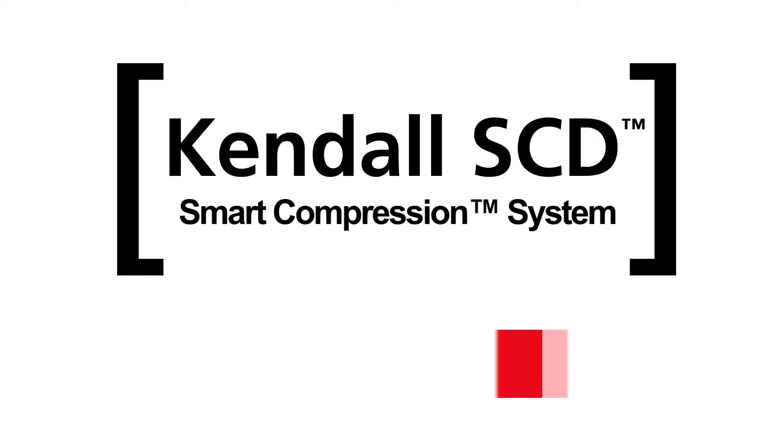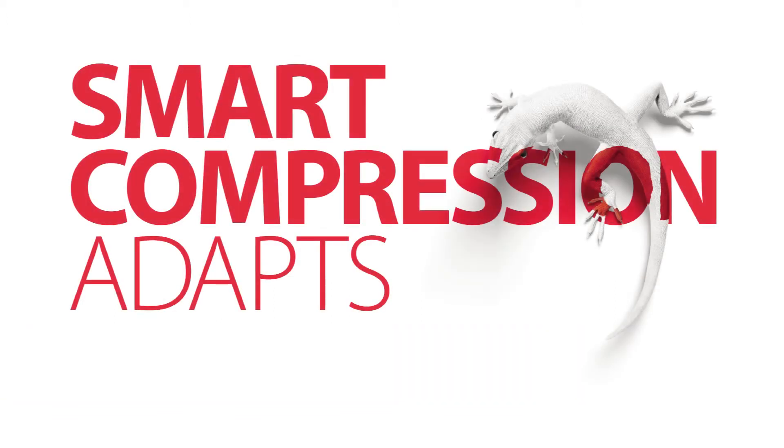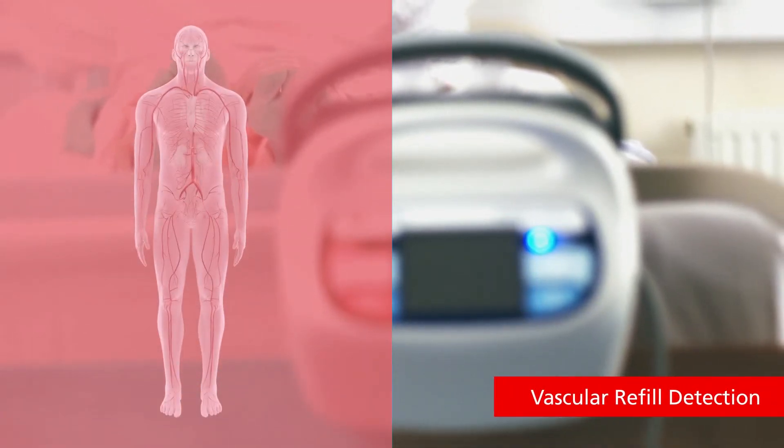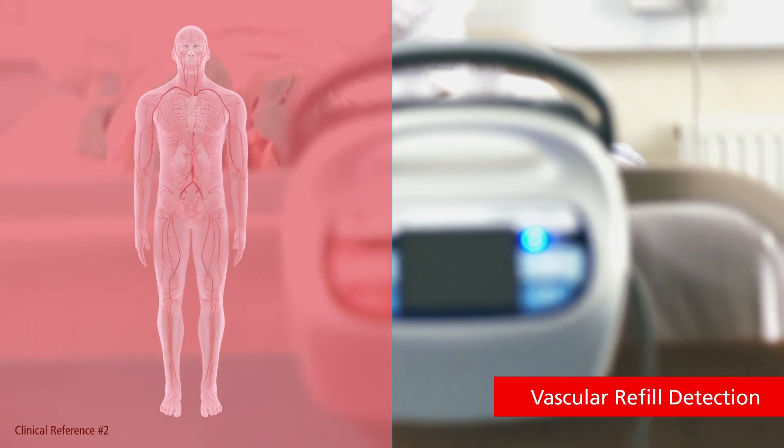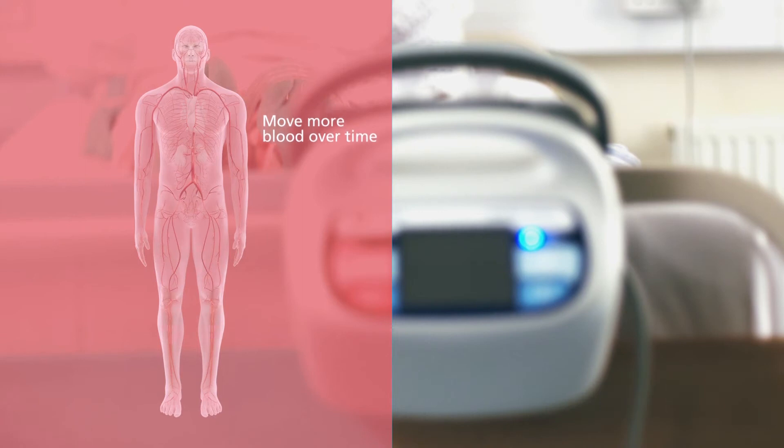Kendall SCD Smart Compression System, your partner in VTE prevention. The Kendall SCD system utilizes a proprietary technology called Vascular Refill Detection or VRD, which customizes compression cycles for each patient automatically, moving more blood over time.